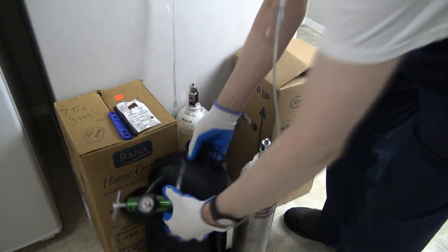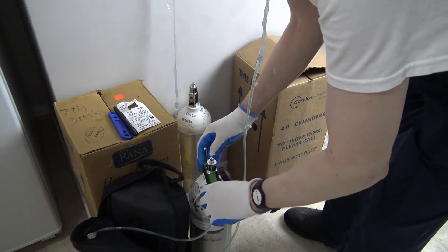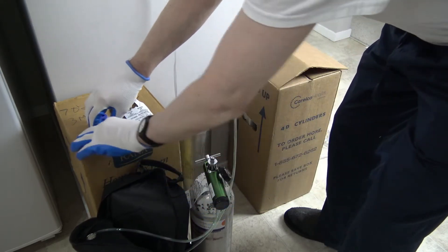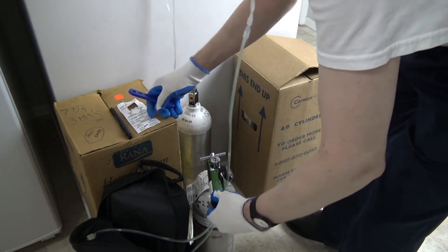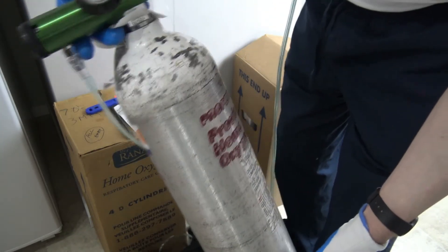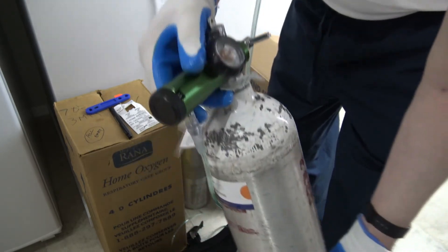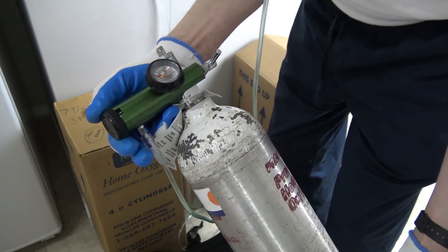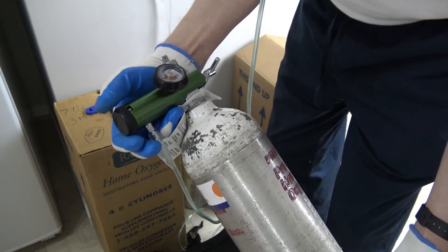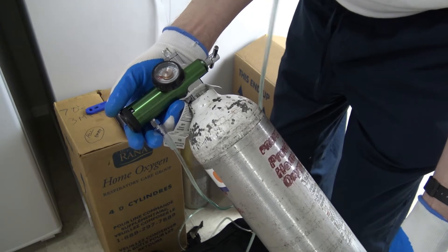Let's take this and put a regulator on it — let's see how this works. 2,000 psi. Here's the regulator — you turn it on. When I'm driving my car I put it on 1.5; on exertion I put it up to 6 to 8, and then you really go through the oxygen fast. At that setting the cylinder should last one hour and 45 minutes.